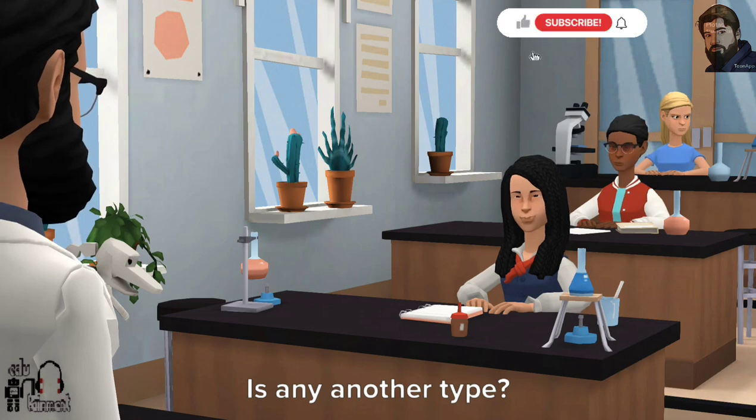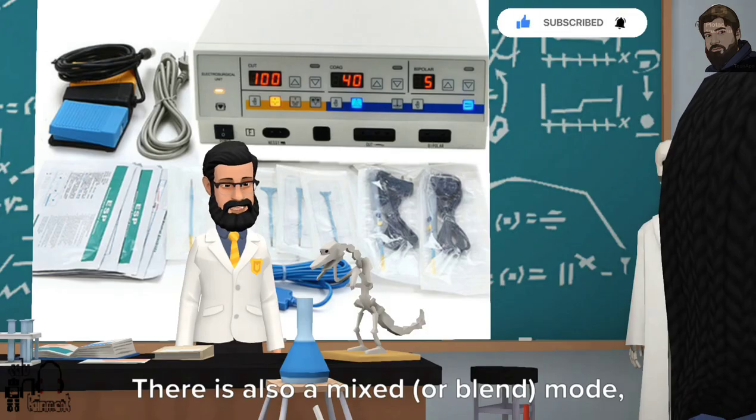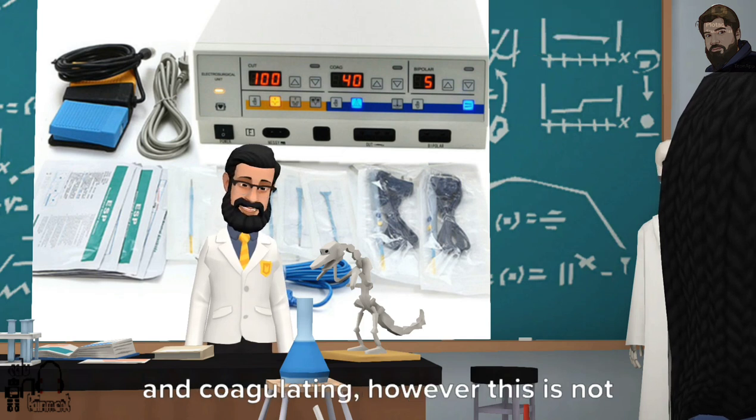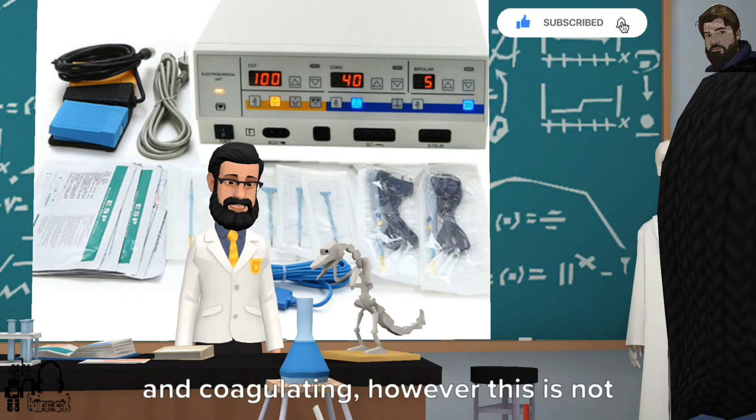Is there any another type? There is also a mixed mode, acting in between as both cutting and coagulating, however this is not widely used.